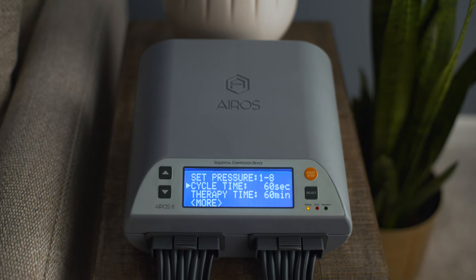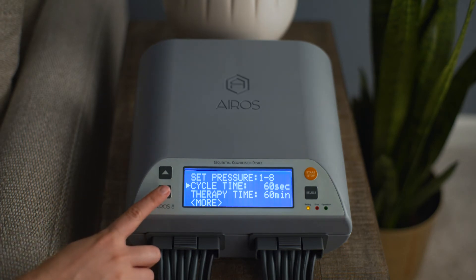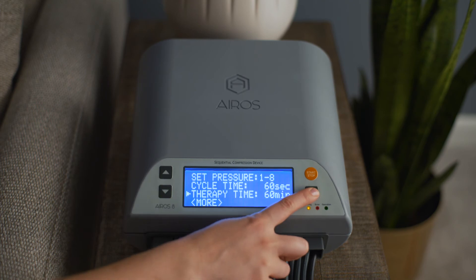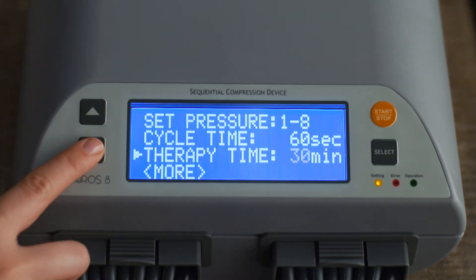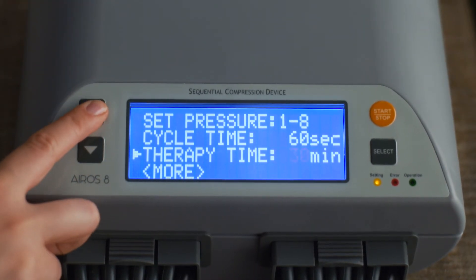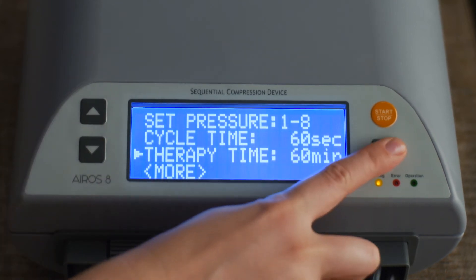To set the total therapy time for treatment, scroll to Therapy Time and press the Select button. Therapy time can be set at 15, 30, 45, or 60 minutes. Press the Select button to confirm your selection.